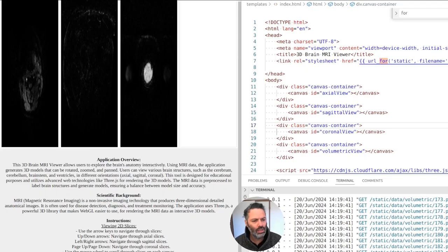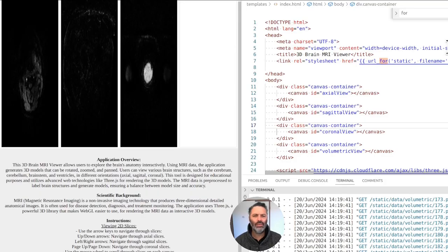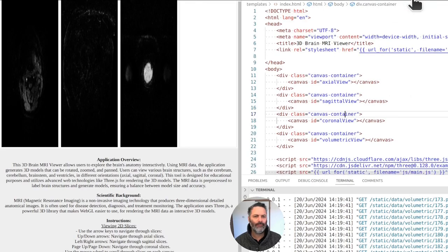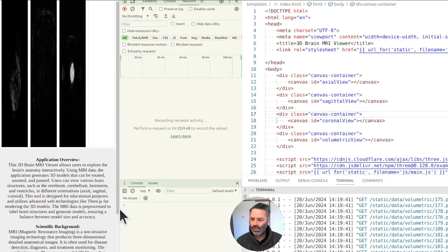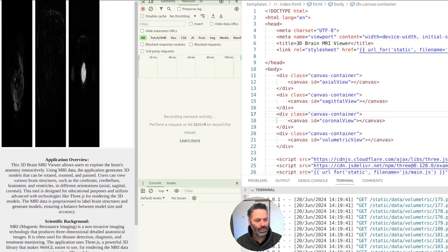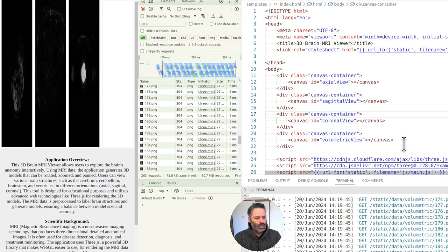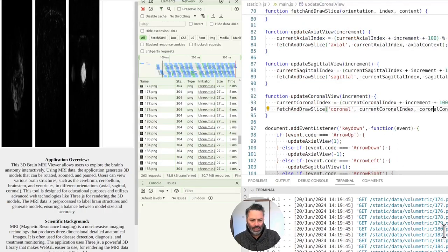Regarding the fourth panel, the volumetric data is supposed to be loaded and displayed — it uses Three.js. However if the volume is not being displayed there might be a few issues. We do have the volumetric raw file — it's a binary file. So the problem is we need more troubleshooting. Looking at the network, there's nothing actually loading the volumetric data.